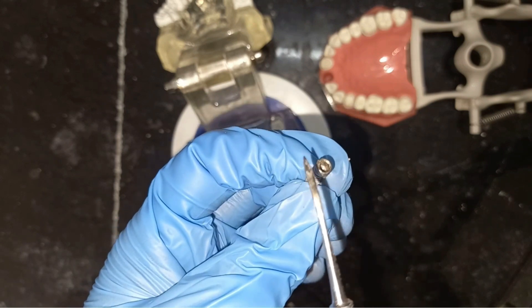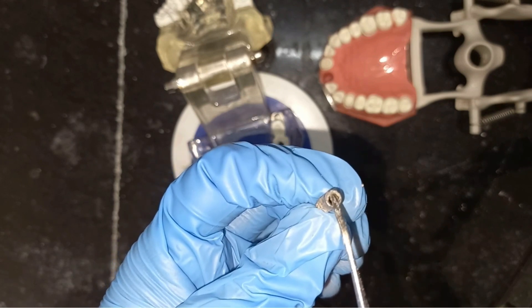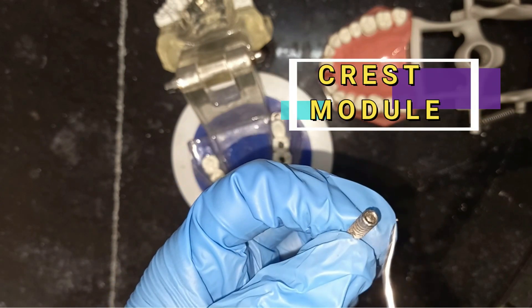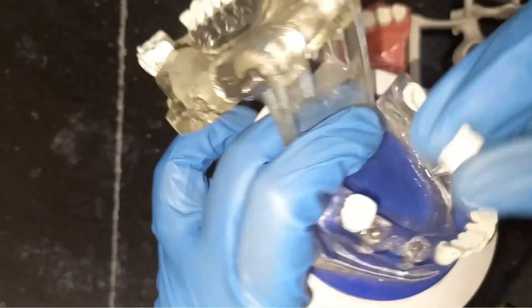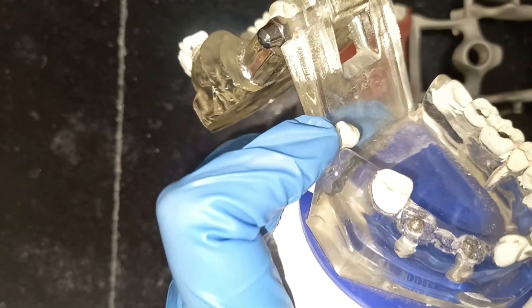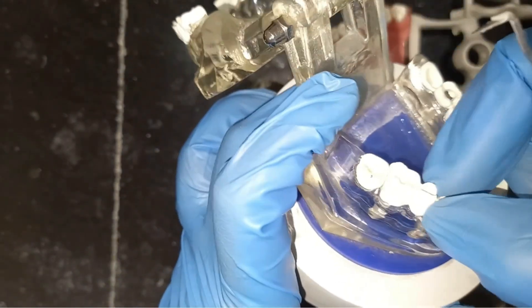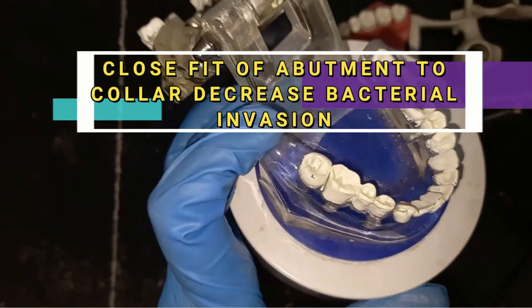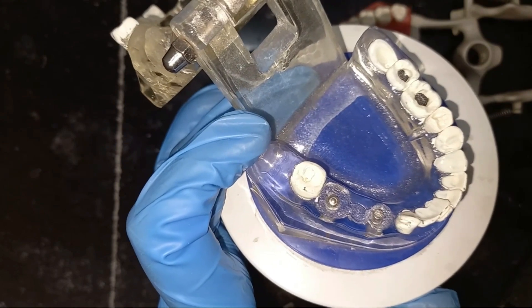In some cases the exposed part is rough — it is then called the crest module. If this collar is smooth, it is called the cervical collar. This part provides precise fitting for the abutment, which rests over the crest module. A close fit between the crest module and the abutment is very important for the success of the prosthesis, and it will also reduce bacterial invasion — if the fitting is close, there is less penetration of bacteria.